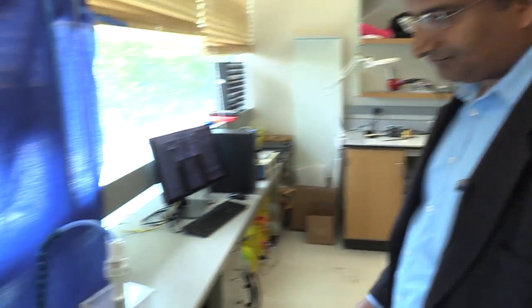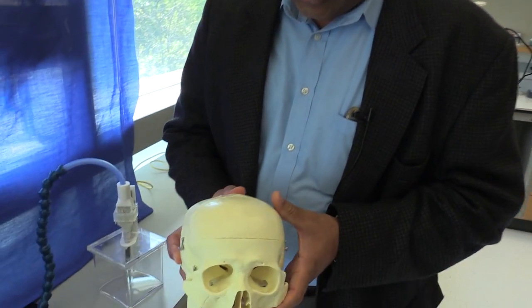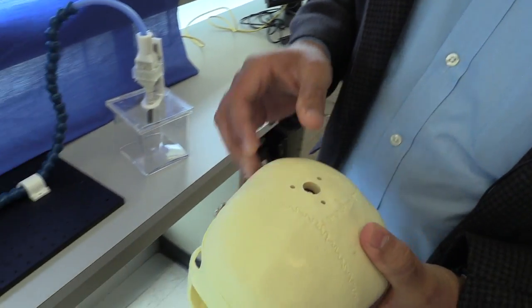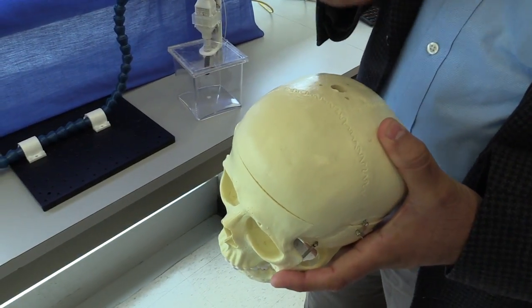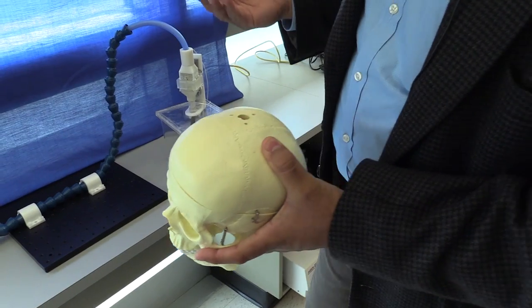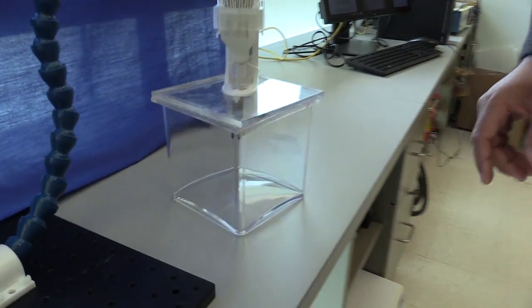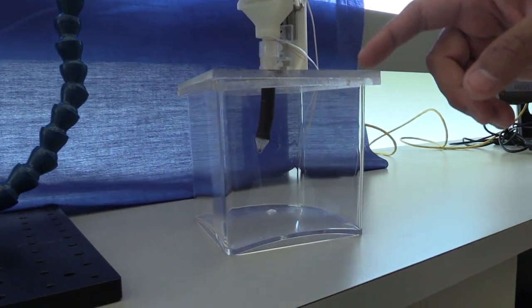The second project, and these are all medical robotics projects, this is about brain and brain tumors, right? Right. So currently, for example, in surgery, you can operate in the line of sight. Essentially, you can operate what you see. And what we are trying to do is to essentially have the capability where you can operate out of the line of sight.